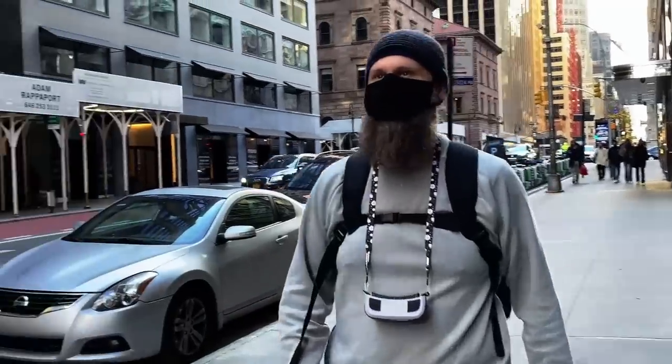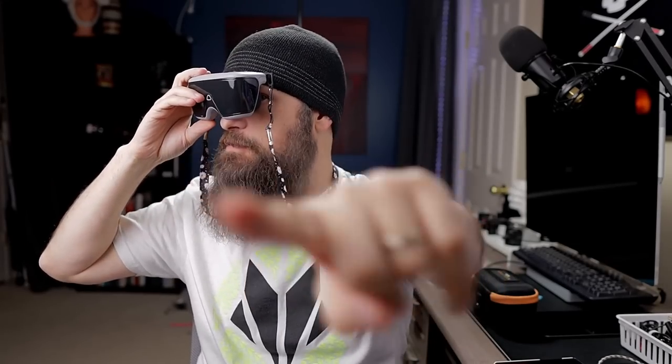I think this is also going to be great for people who are hesitant to use a big bulky headset system out in public. Pricing is always the number one concern, but people also say they would be self-conscious wearing something big out in public, so something like this is much more approachable. Something else that's nice is that it's all open — with it on your eyes, you can still see everything around you with your peripheral vision. And I love the fact that it's so lightweight, just about half a pound — about 8.4 ounces with the head strap.